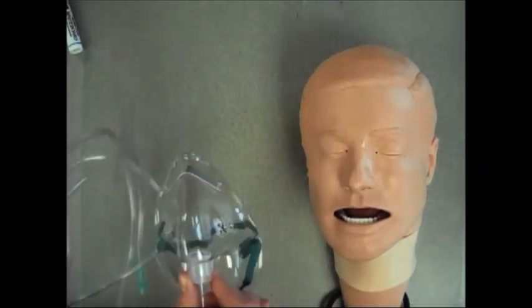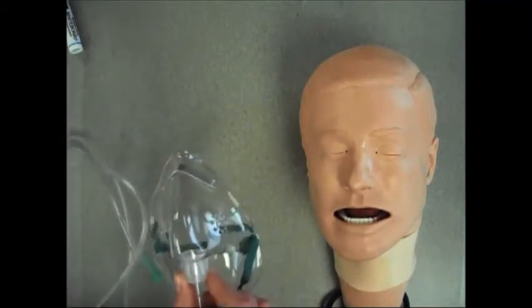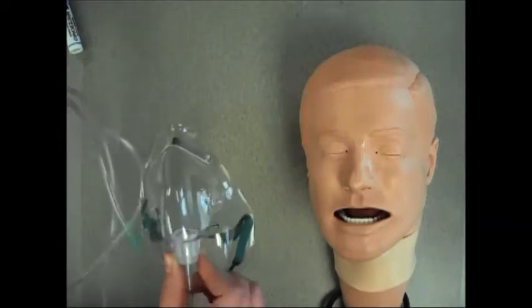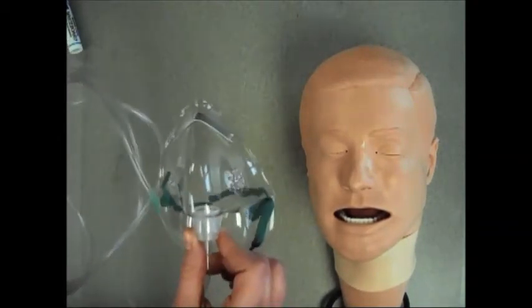5 to 10 liters of oxygen per minute should be used with a simple face mask. The device delivers 40 to 60% oxygen and allows room air to be mixed in with the oxygen.